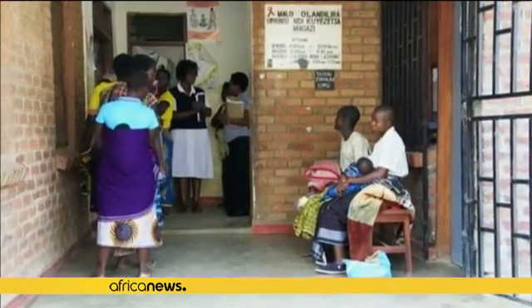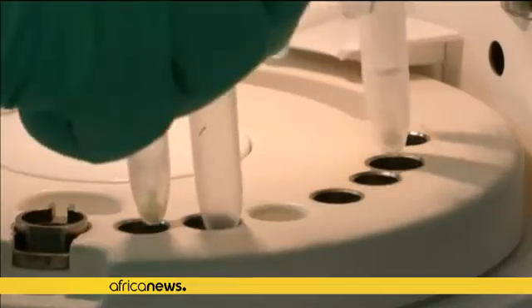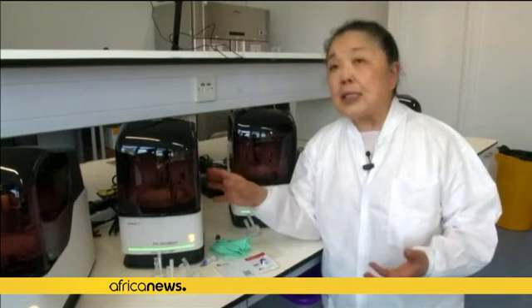This piece of technology has made rounds in Malawi, Uganda, and other parts where there is a high prevalence of infectious diseases. The team, however, experienced a few hiccups. The SAMBA 1 machine, which is the first generation, for two days it didn't work in Malawi because the temperature in the lab went to 38 degrees centigrade. So they ended up having to redesign SAMBA 2 to widen the temperature stability — now it can go to 40 degrees centigrade.